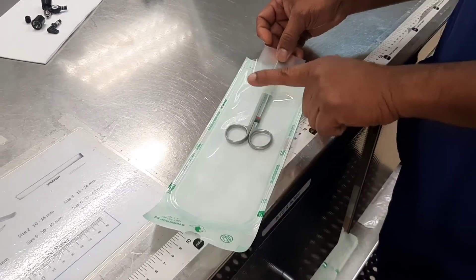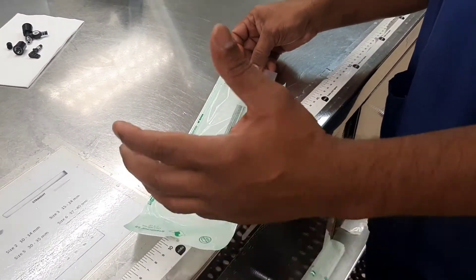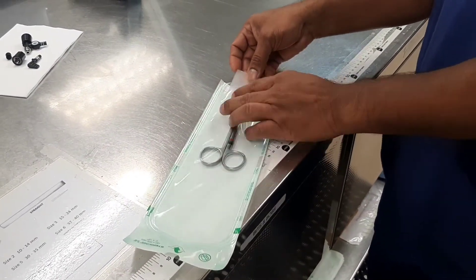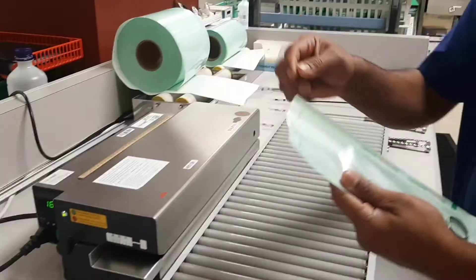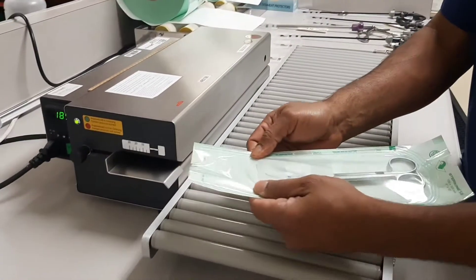This free space allows the pouch to be filled with steam during sterilization, and we can avoid tears and rips of the pouch. Once they are in the pouch, we have to seal the pouch with the sealing machine. When sealing, make sure the sealing is complete.